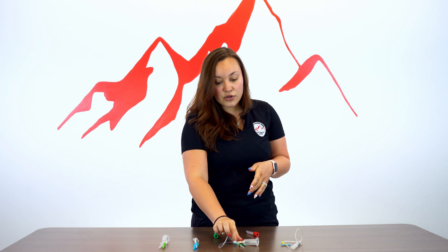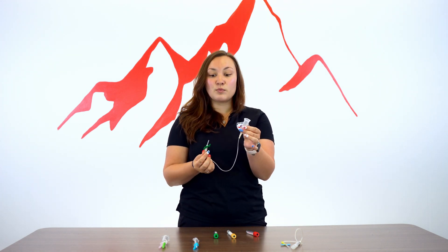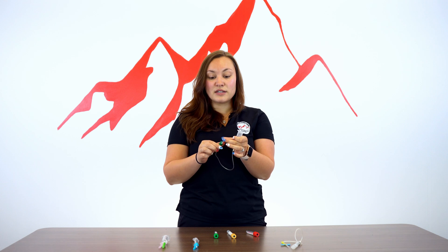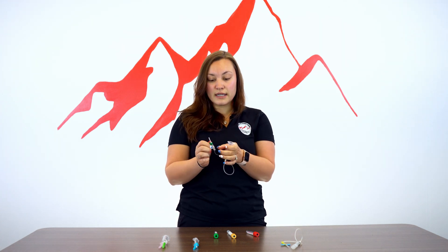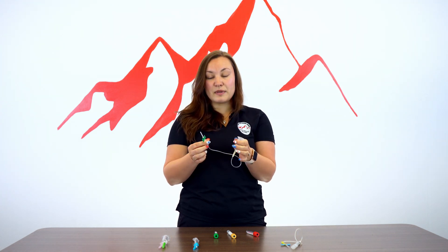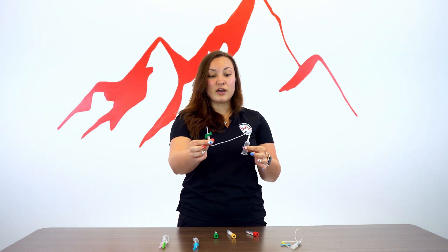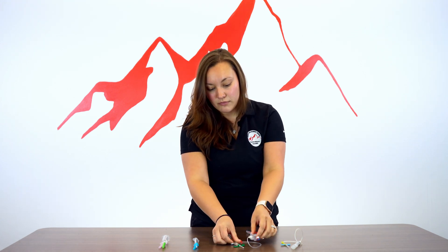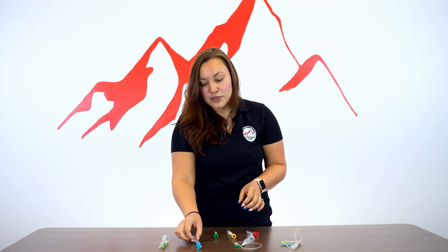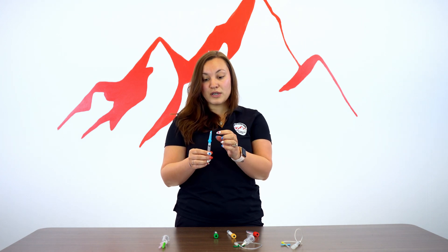The green butterfly with the evacuated tube system would be used for someone who needs a lot of tubes drawn at once, and potentially for blood cultures as well. This is the easiest way to get blood cultures drawn because you can draw multiple tubes and you have a lot of range of motion with this needle.